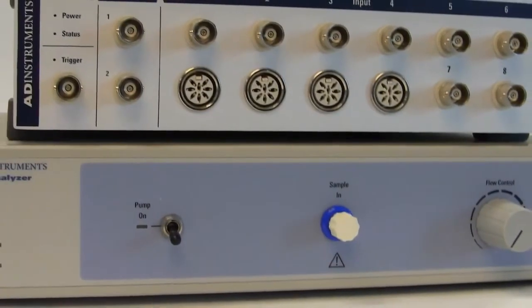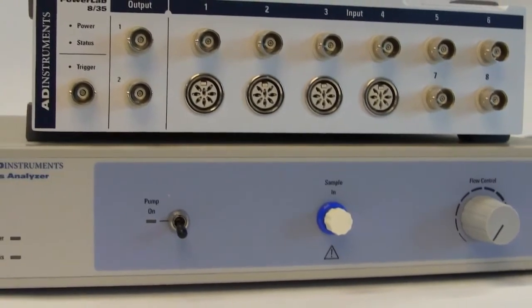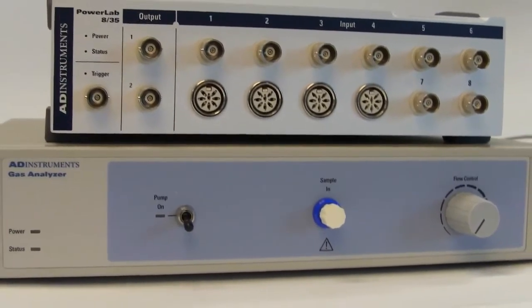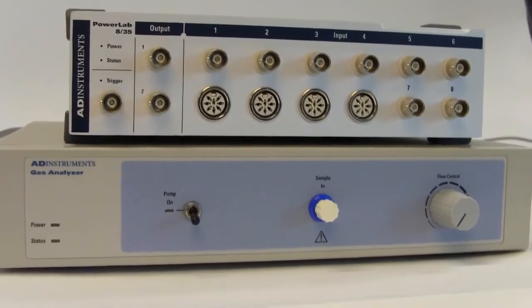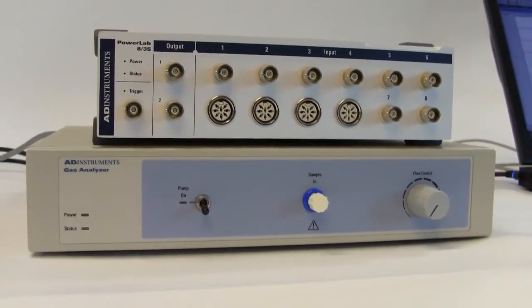The AD Instruments ML206 Gas Analyzer measures oxygen and carbon dioxide concentrations in expired breath, typically in exercising humans or small resting animals.